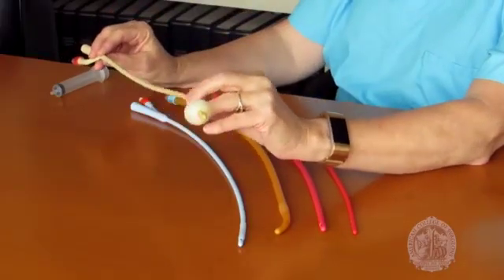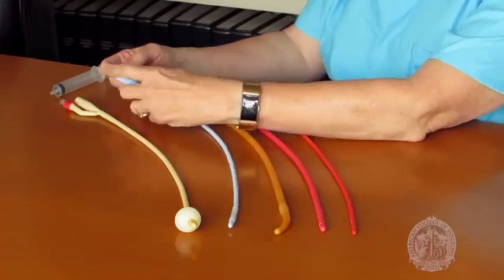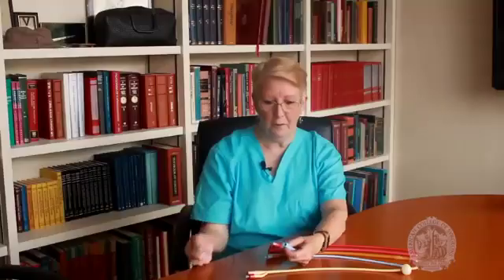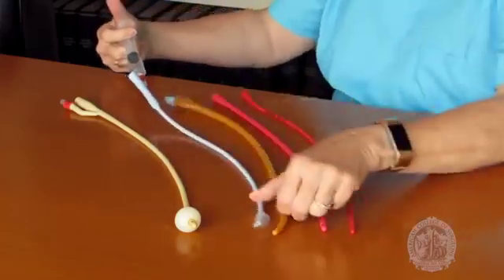It comes in various sizes, measured using the French system. On the internal end, it has a balloon to ensure that it stays in place. On the external end, it has two branches. One drains the urine into the collection system — connected to tubing and then to a bag — while the other is used to fill the balloon with sterile water. Be sure to check the number on the ring at the end of the catheter because that will tell you how much volume to use when filling the balloon.